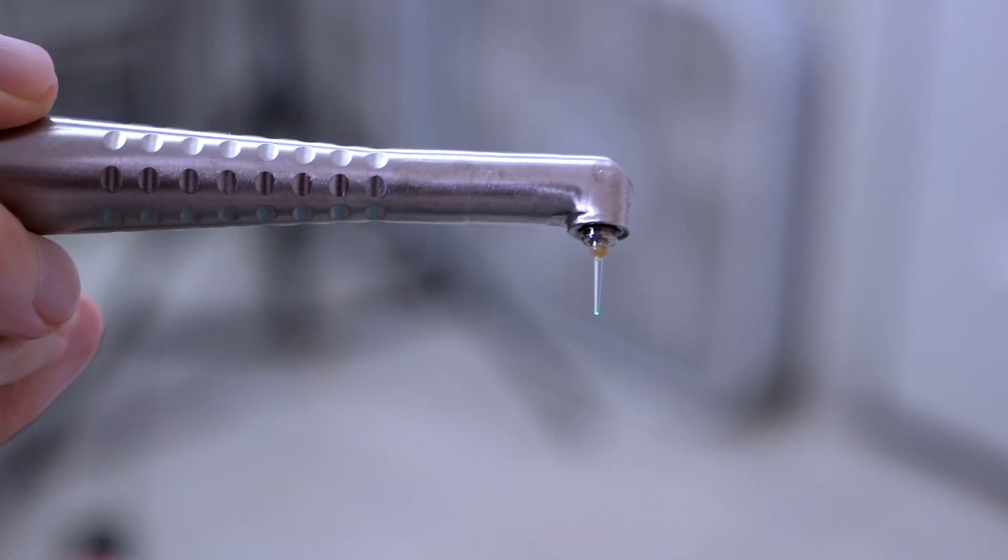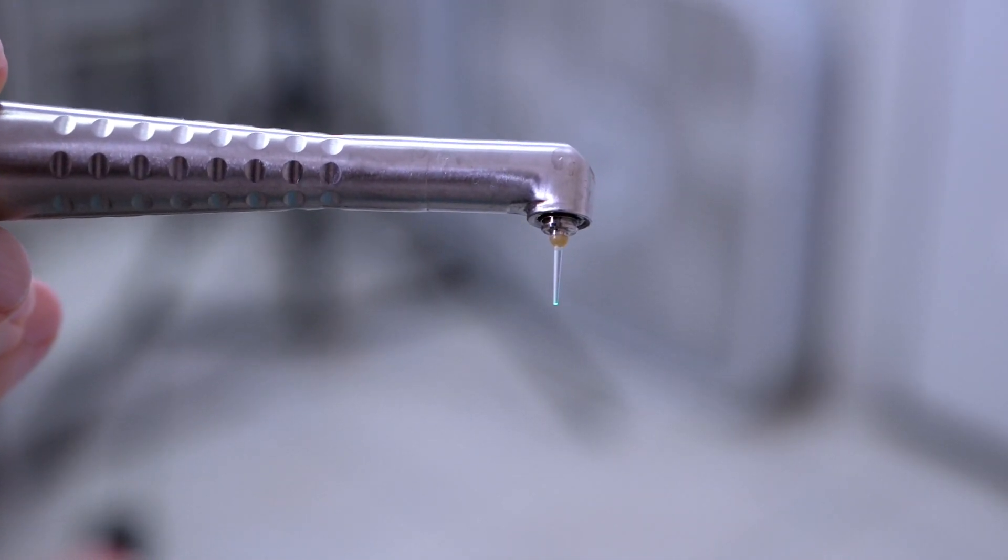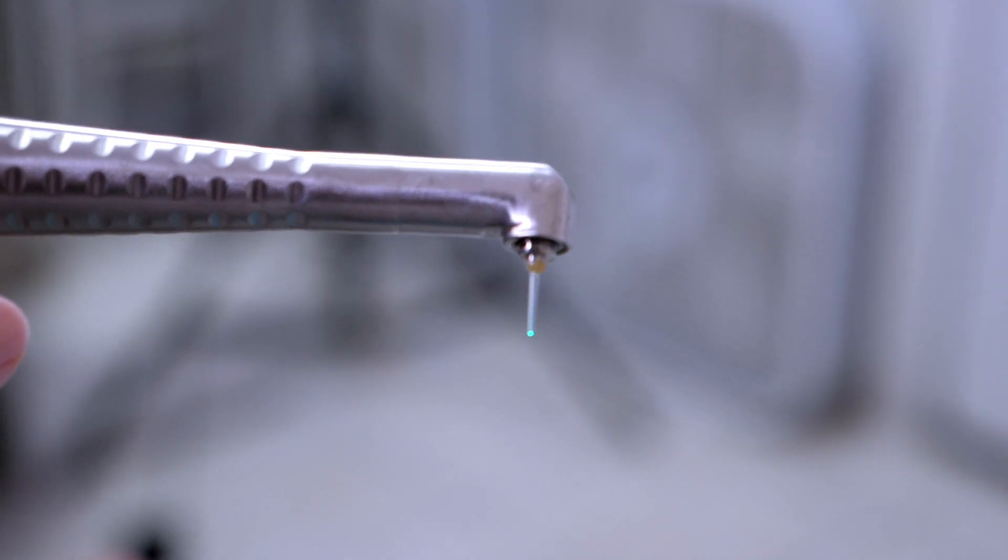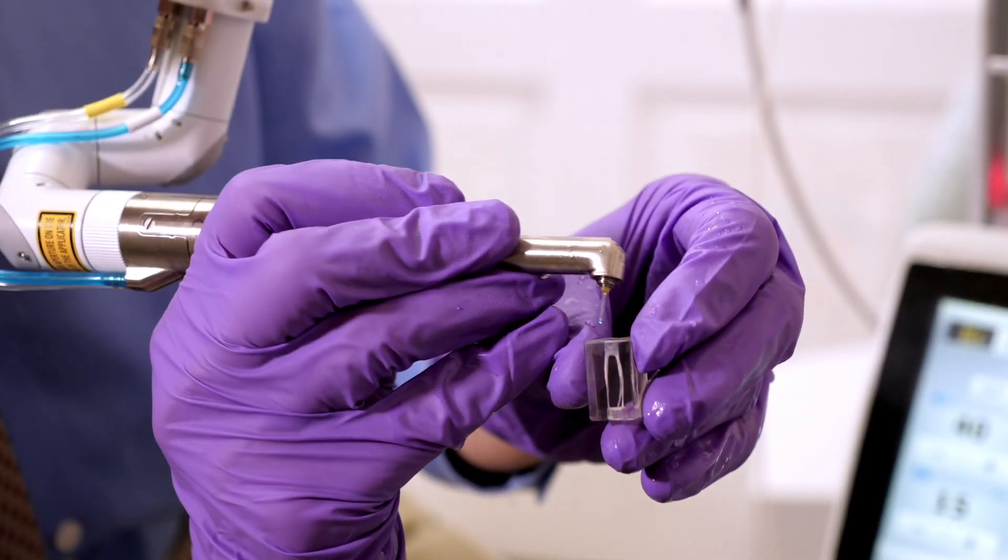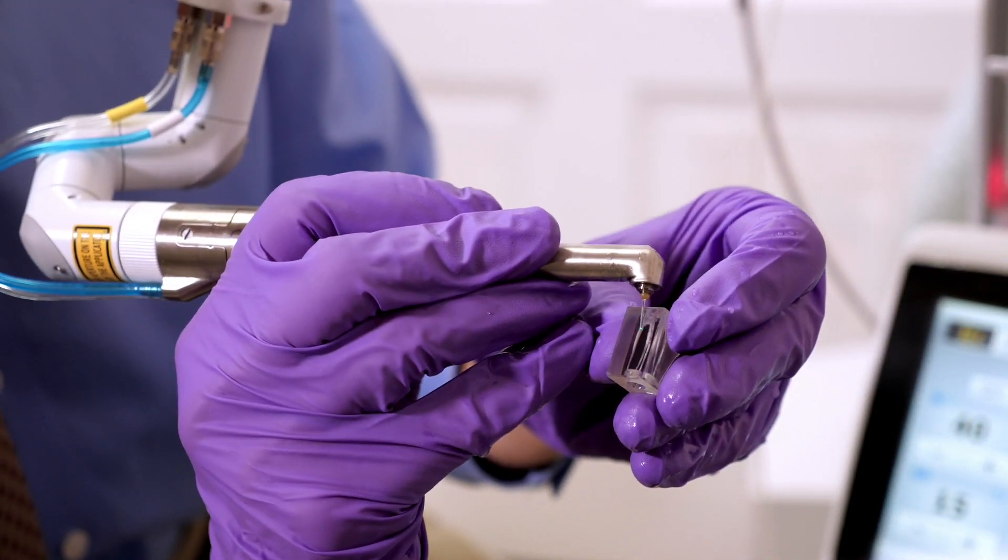The thing I like about this laser the best is that it actually does root canals in a way that nothing else does. It'll remove bacteria from the teeth and also from the tubules of the roots.